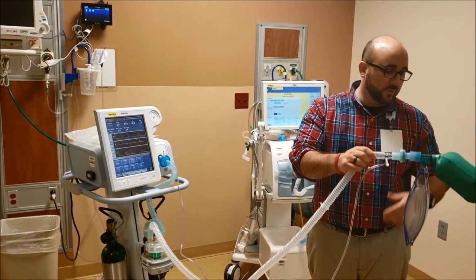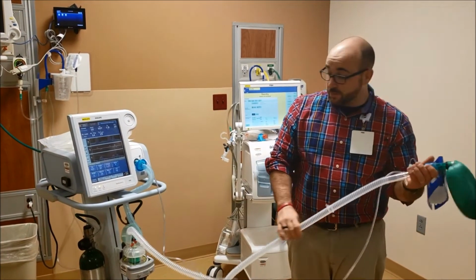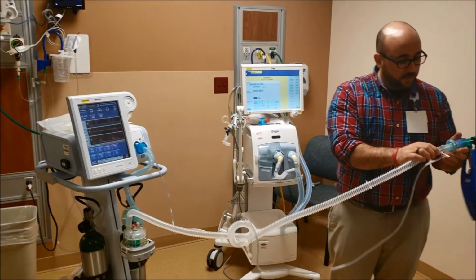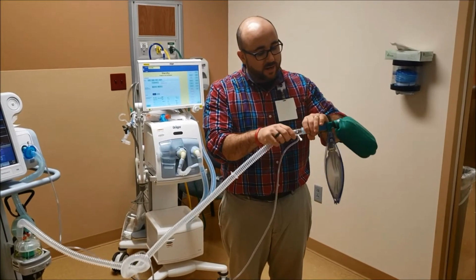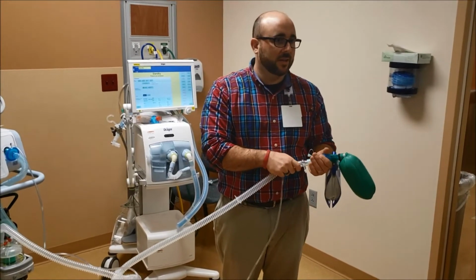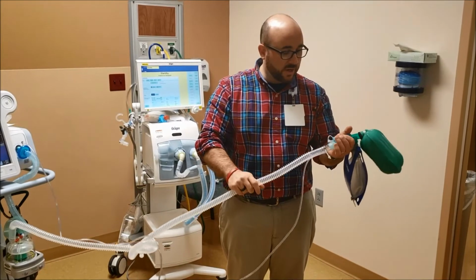This is a big contraption we did just to show 2 lungs. It won't look anything like that, but it looks pretty streamlined. And the HME right here, that's really important. That's heat moisture exchanger. So when they exhale into this, it moisturizes and heats that air. So when the air comes to them, it's heated and moisturized. It's not ideal like we use in the ICU where we heat the whole circuit, but it works well down here for you guys.